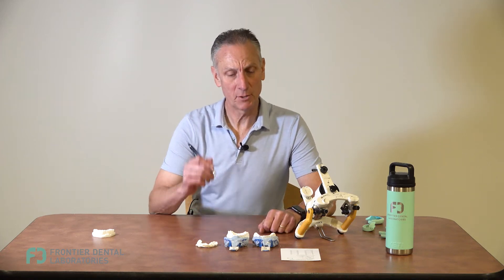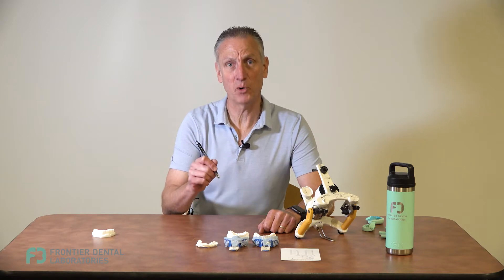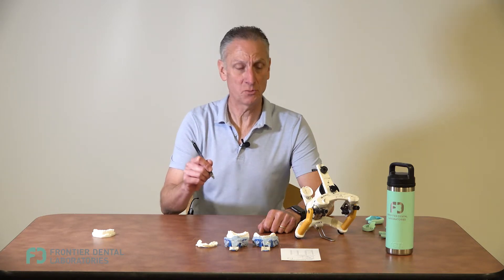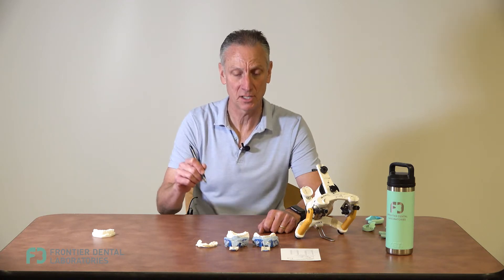Hi, this is Brent at Frontier Dental Laboratory. Today I'm going to go over diagnostic designs and really emphasize some key points that are very important as we develop the smile, because this will be a template to go to the finals, and so everything is really set up at the very beginning with the diagnostics.